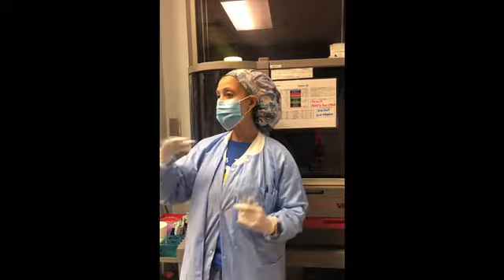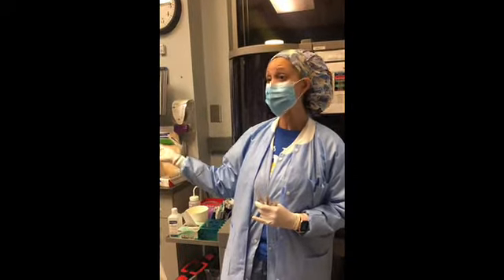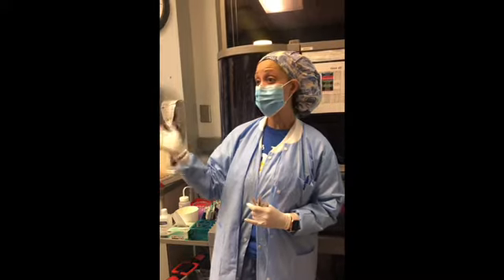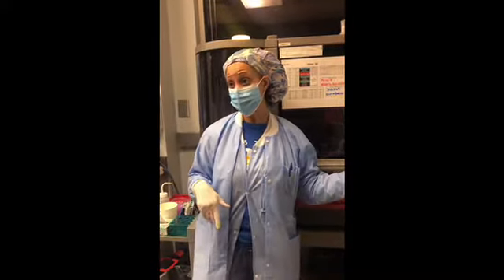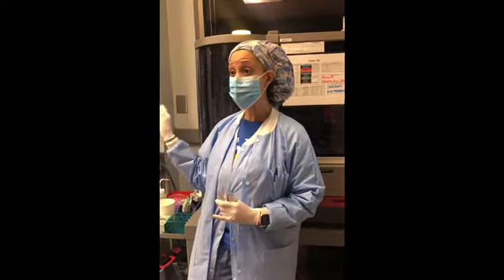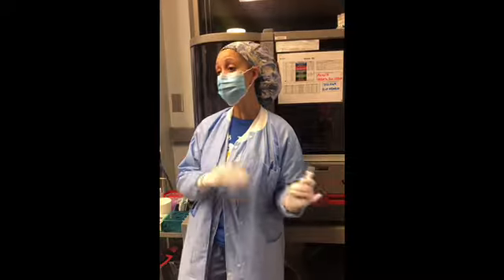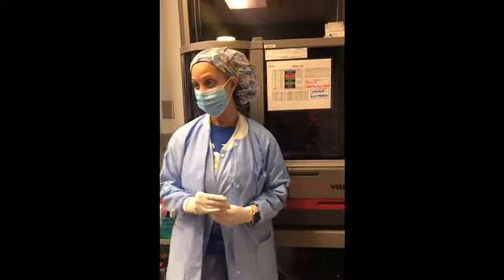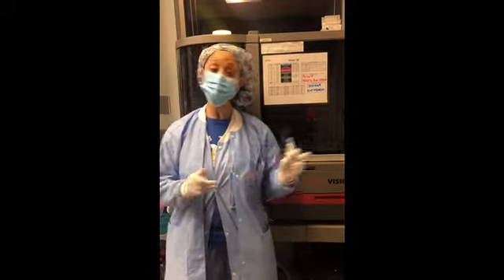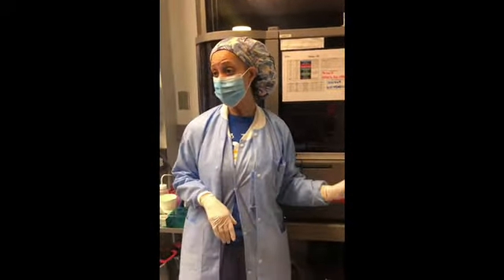You know how for the adult DATs, they order that code in SunQuest, and then we have to add on that DBS and that DIG. So whichever test that you're running on here, you have to add it into SunQuest first before your results will cross over. But they will cross over once you go ahead and order that test. What are those two tests you have to order? It all depends on which one you're running. DBS is for the poly, DIG is for the DAT.